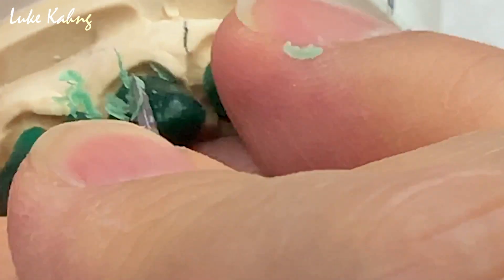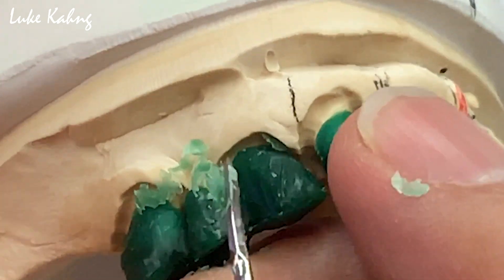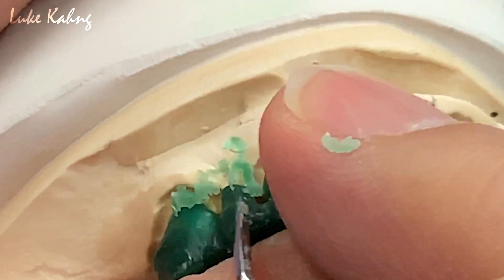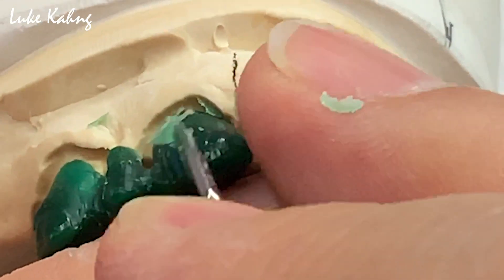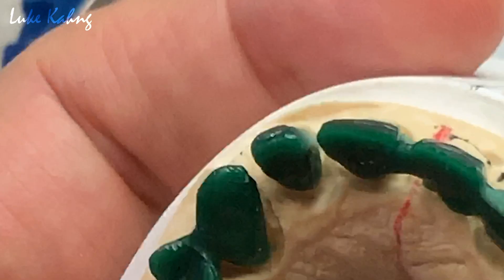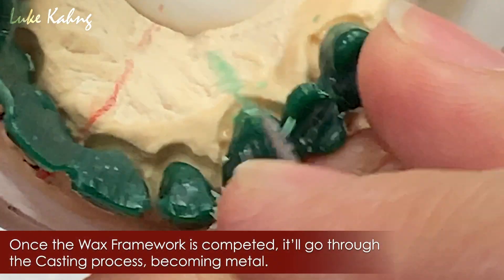Your shape will be like that. I got the good proper canine position here. I'm going to cut it here, not there. So I can get the compensated premolar or similar. Like a proper form. You have to make it thin as possible here. I can cut here — with this — so I make the proper canine. Same alignment. I don't need much to linger because this is a porcelain fused to metal.